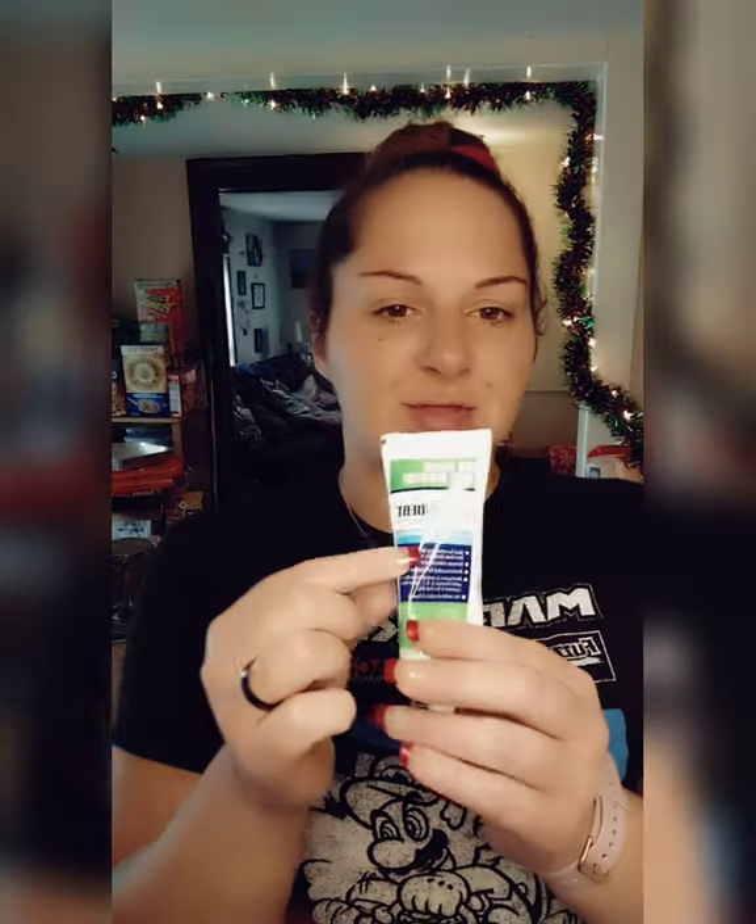This is around $2.97 at Walmart unless the price went up. You can use it in your denture and your mouth, so it's like two products in one. You don't need to use toothpaste separately — you can't use toothpaste on your denture anyway. It'd go on your gums, and you'd need a separate product for your denture. With this, one thing helps dry mouth with essential oils for your denture and your mouth. That's basically what I use all the time — the Dr. B's one.